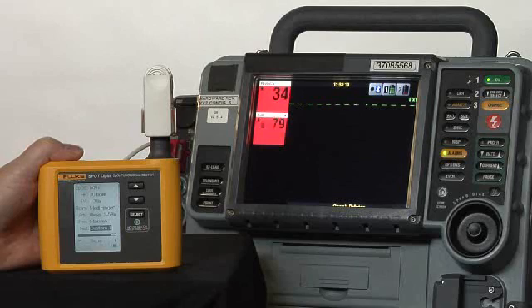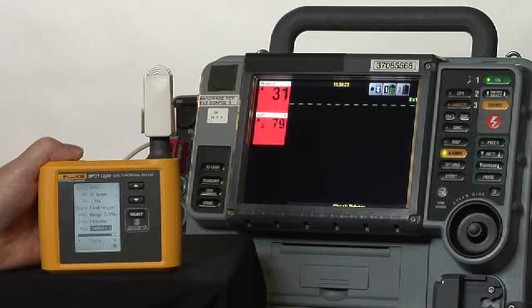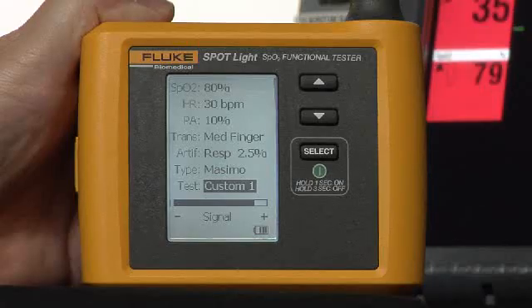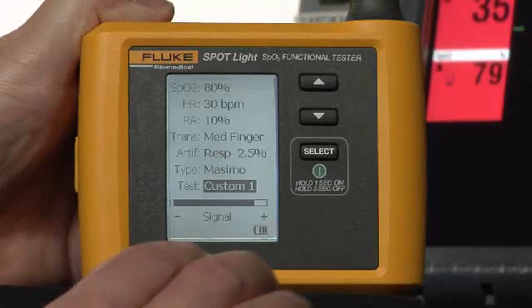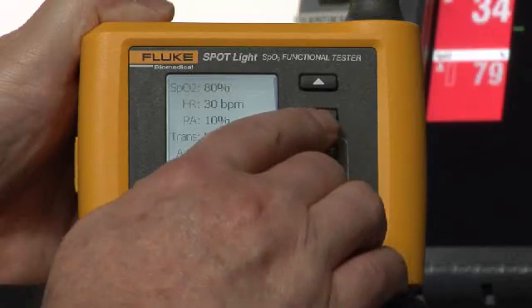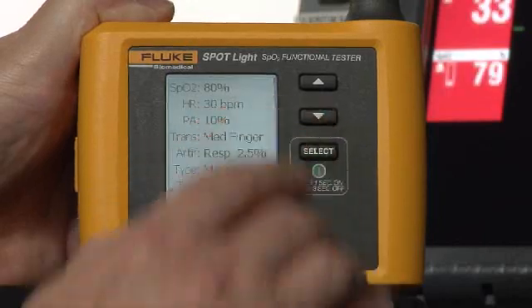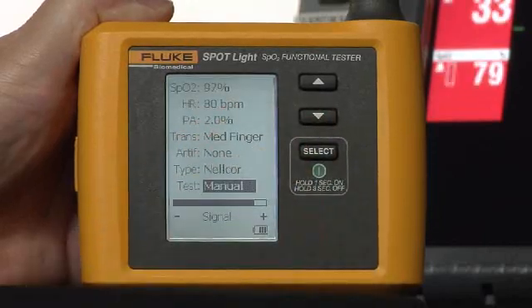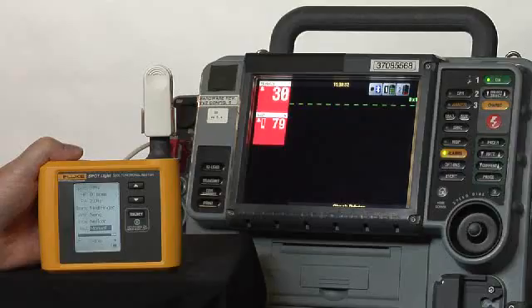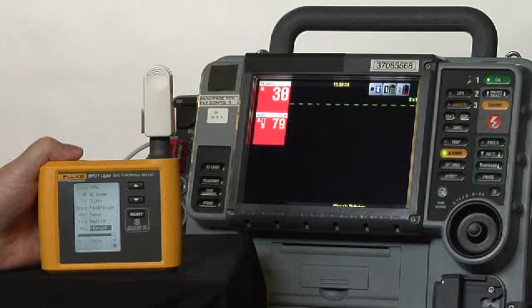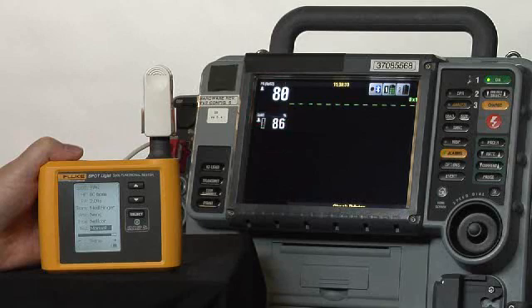And again, we'll wait for the readings to settle, and we'll push one more time to get back to a more normal reading so the alarms will quiet once more. And there we are.